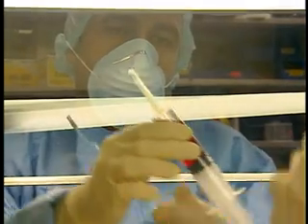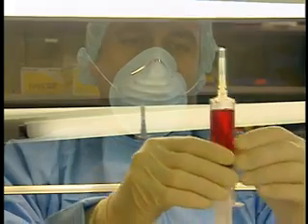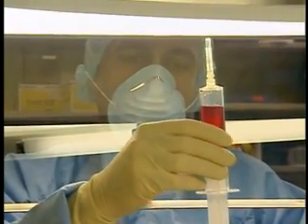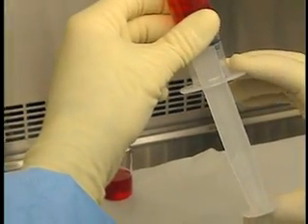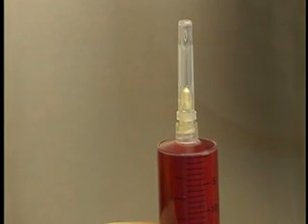Use one large air bubble to catch all the smaller bubbles. Then tap the syringe barrel to free the bubble from the rubber of the plunger. Pull down gently on the plunger and then push up slowly without allowing the fluid beyond the transparent part of the needle.